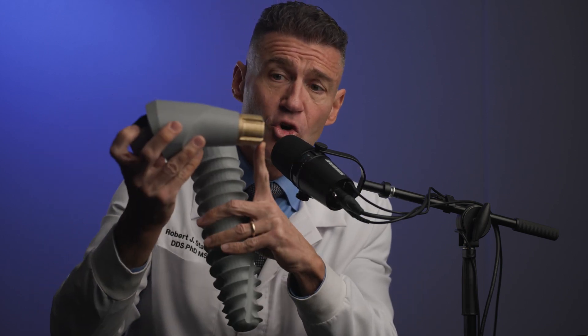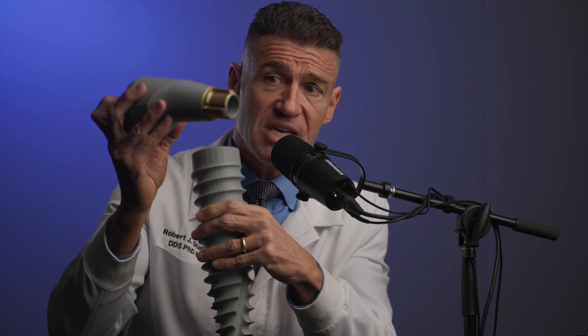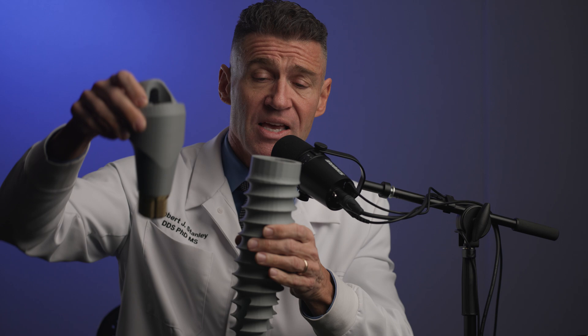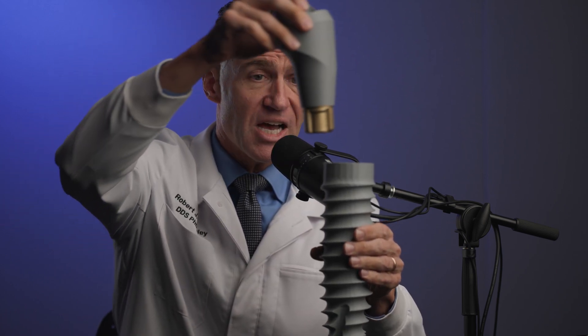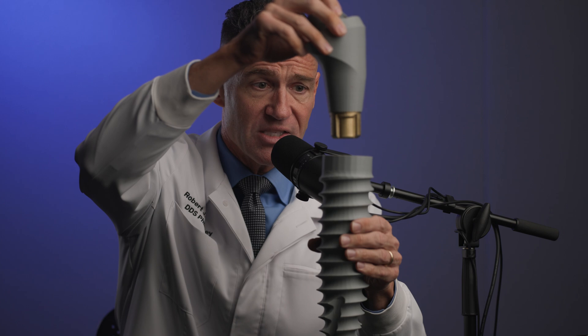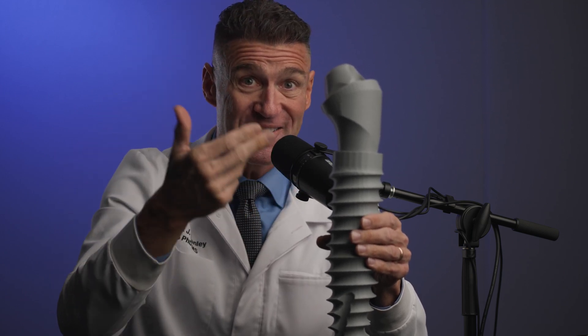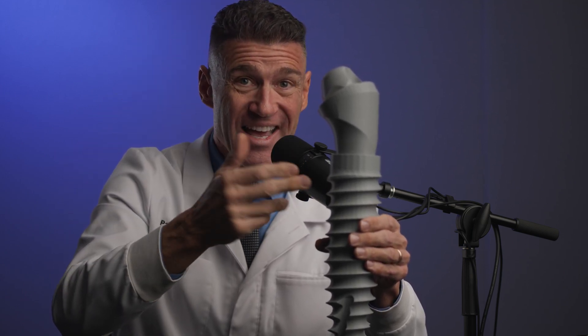Now, enter the new player in town — the deep conical seal. It has three cams that interface with the six cams on the inside. Without even engaging, I'm going to hold this directly above it — about an inch away, or 25.4 millimeters for you Europeans — and I'm going to drop this. Guys, it just self-centered. It just went in.